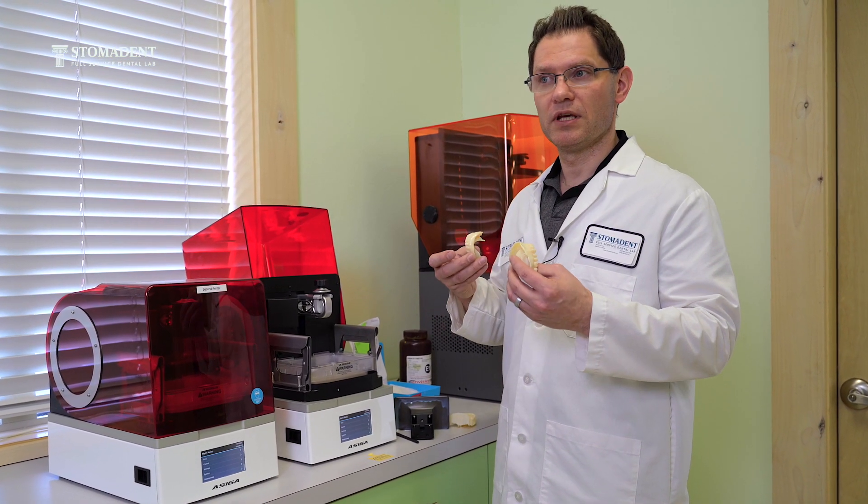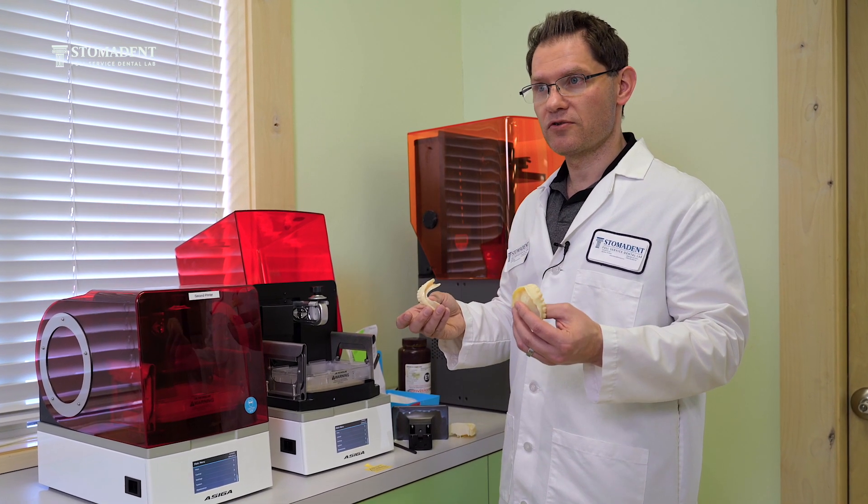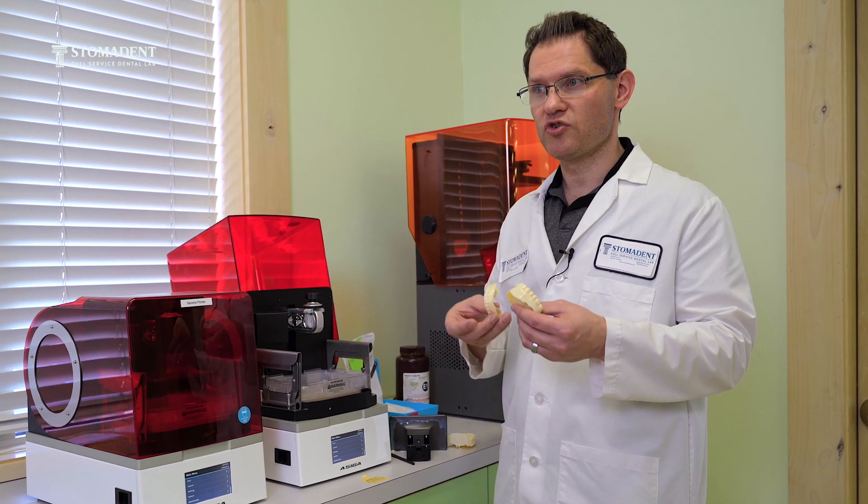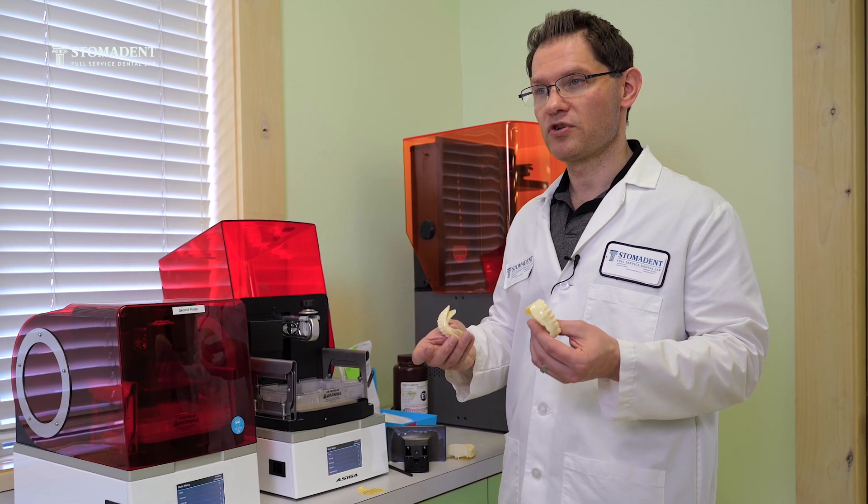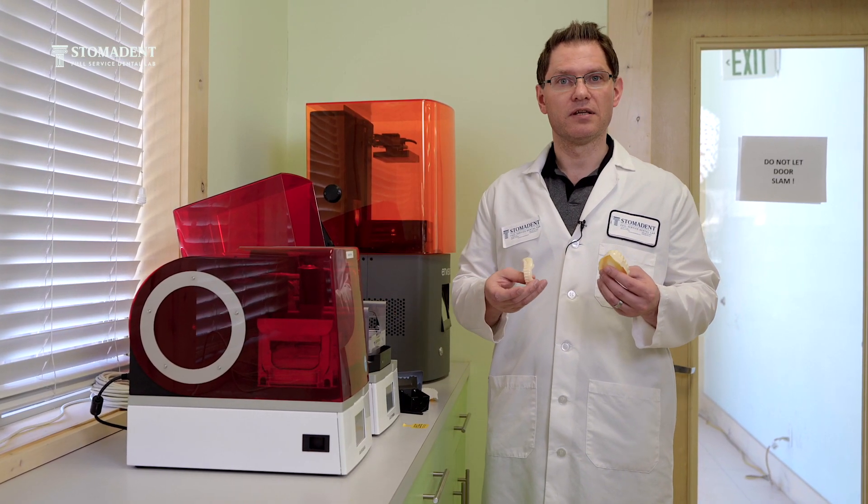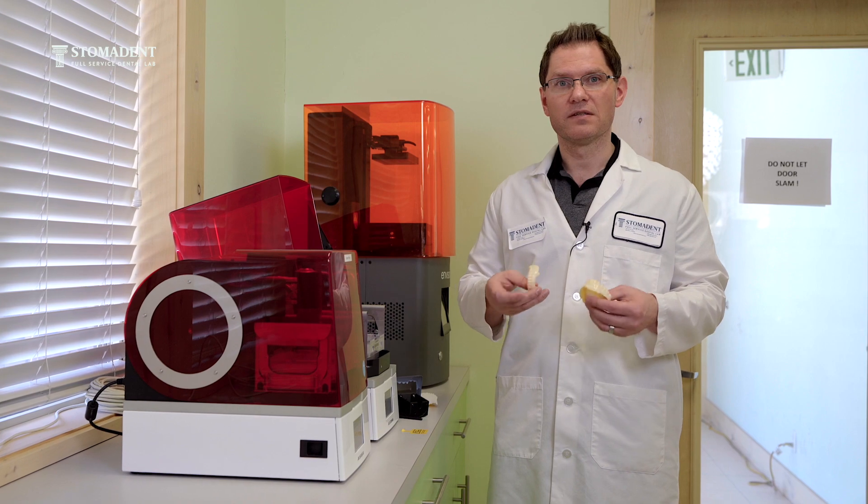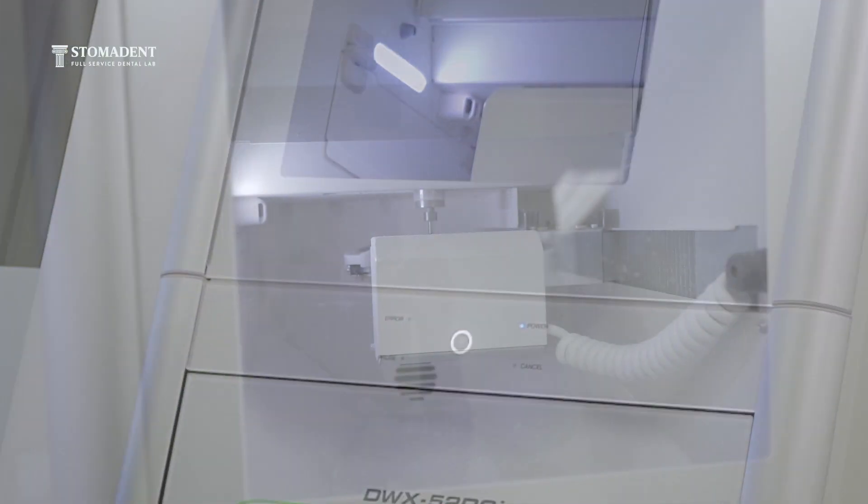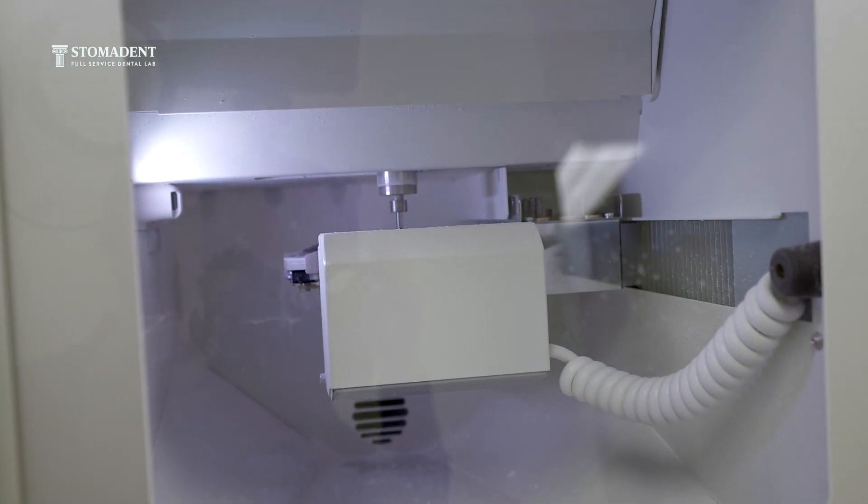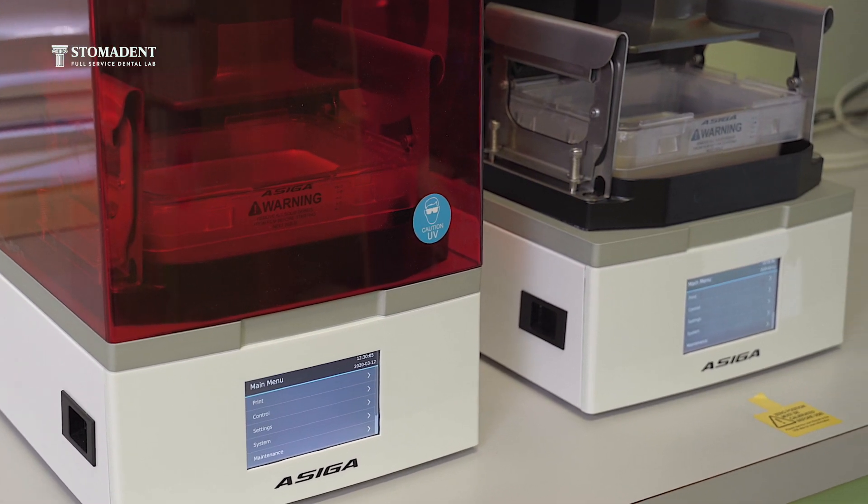You can trim it or write a description. We'll change it according to your description and reprint the case in a real base. The teeth can either be milled or printed.